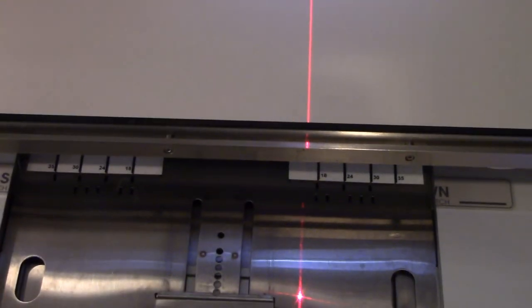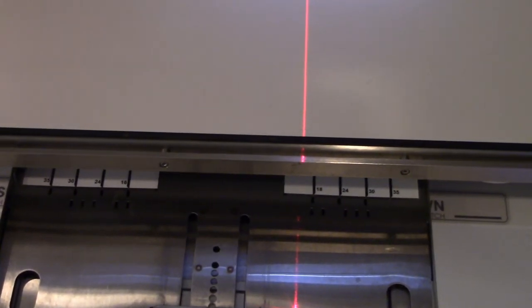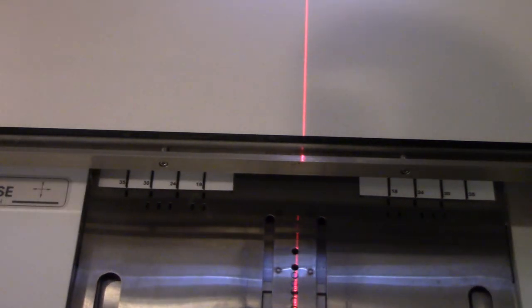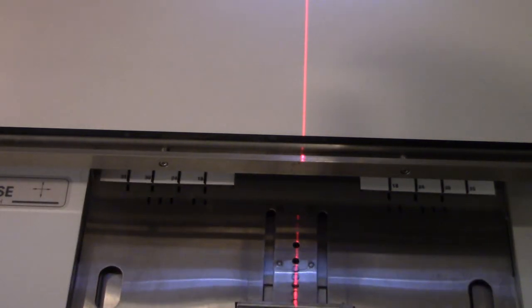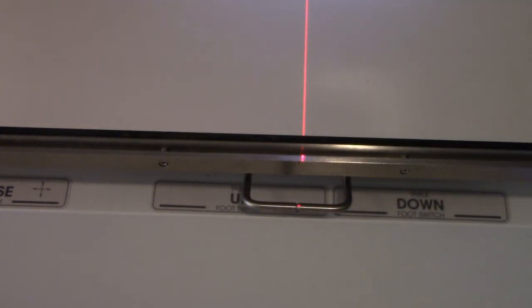I'm just going to kind of move that thing over like so. Okay, now everybody's nice and aligned, but that was not what I really wanted to show you. See that light field? It's adjustable. I can make it wider or more narrow.